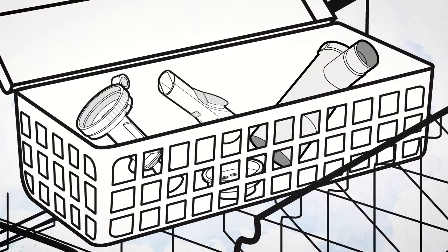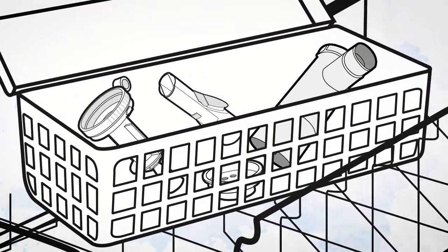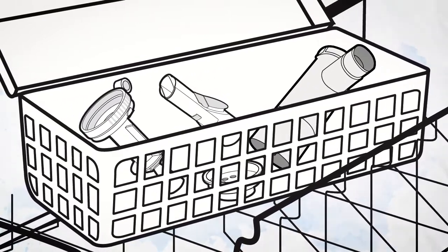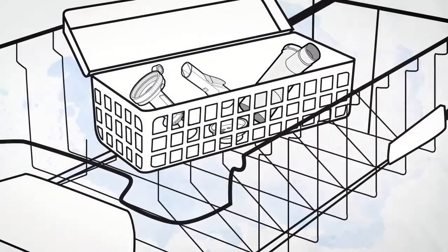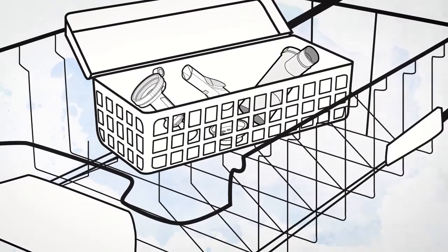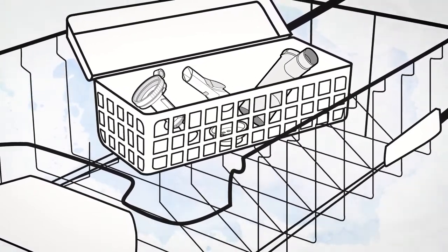Your LC Plus is dishwasher safe. Again, please do not wash the tubing. Place the reusable nebulizer parts in a dishwasher basket, then place the basket on the top rack of the dishwasher. Remove and dry the parts when the dishwasher cycle is complete.